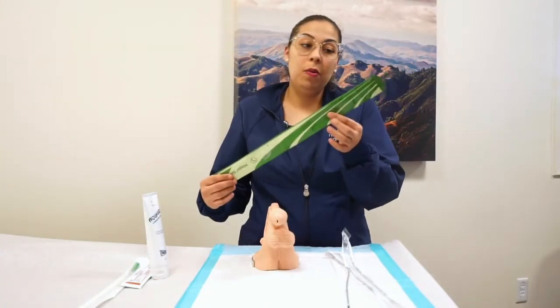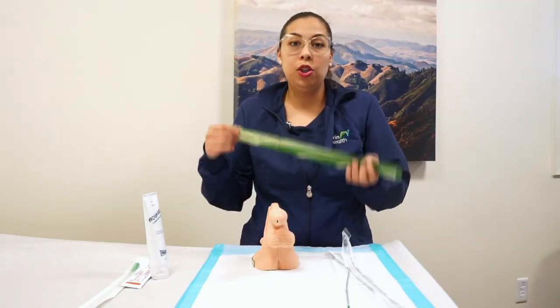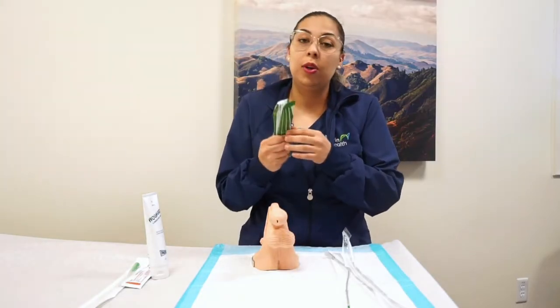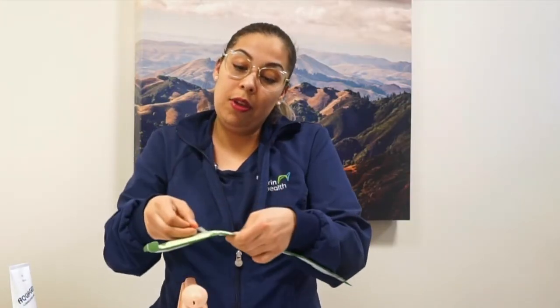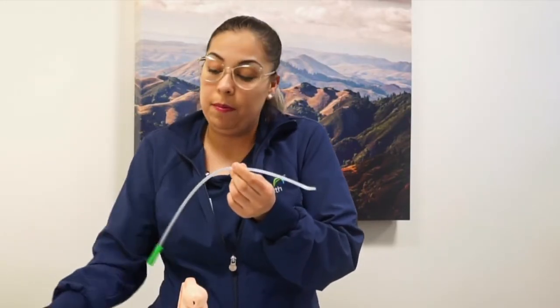We also have the other ones that are already lubricated. These ones are for people who travel — they can fold it in three and put it in their pocket, so it's more private. You can open the catheter and they have a sticker that you can tape to the counter in a public bathroom, so you don't have to worry about getting the catheter dirty or introducing an infection. These ones are already lubricated, so you don't have to carry any extra bottle.